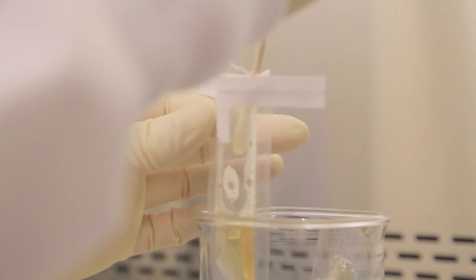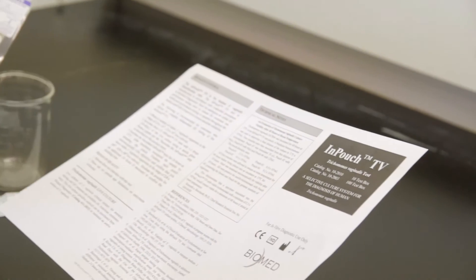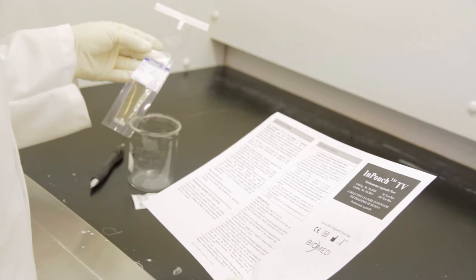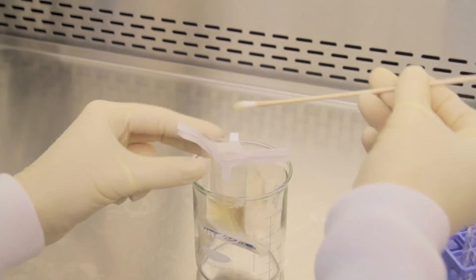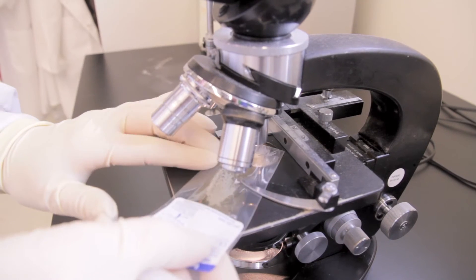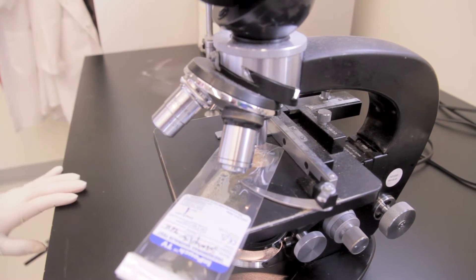Each Biomed InPouch TV Diagnostic device includes complete instructions for use in which everything you need to know covering sample collection, device inoculation, incubation requirements, and observation are included.